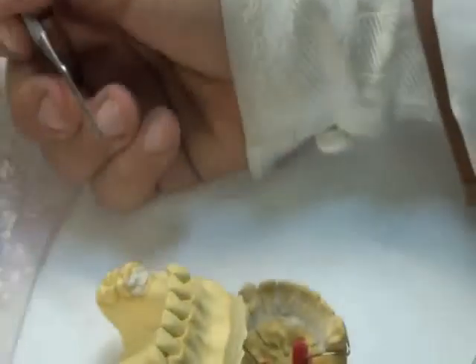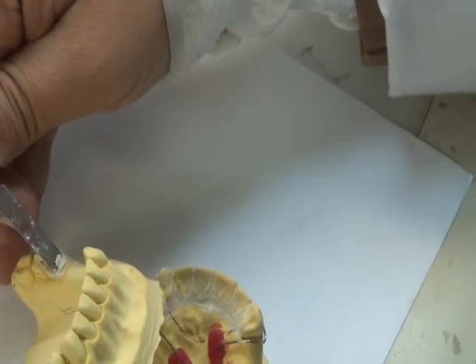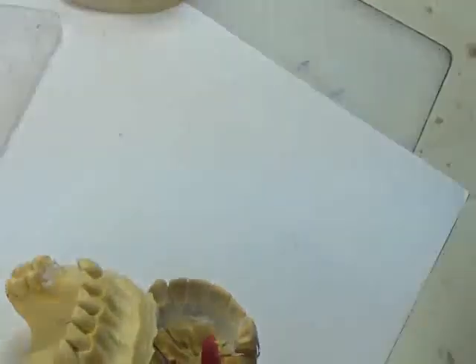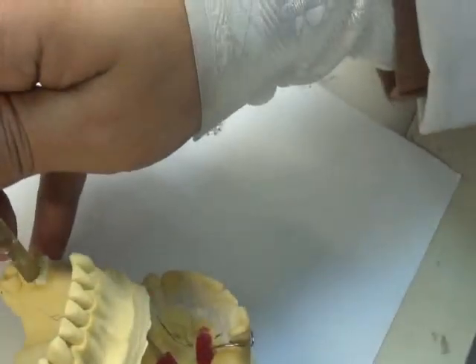I'm just going to do it manually to show you on the demo. On the surveyor, you went down with the chisel and exposed the survey line. The chisel goes down in a vertical manner, removes all of the excess plaster, and you re-expose the survey line that you had.